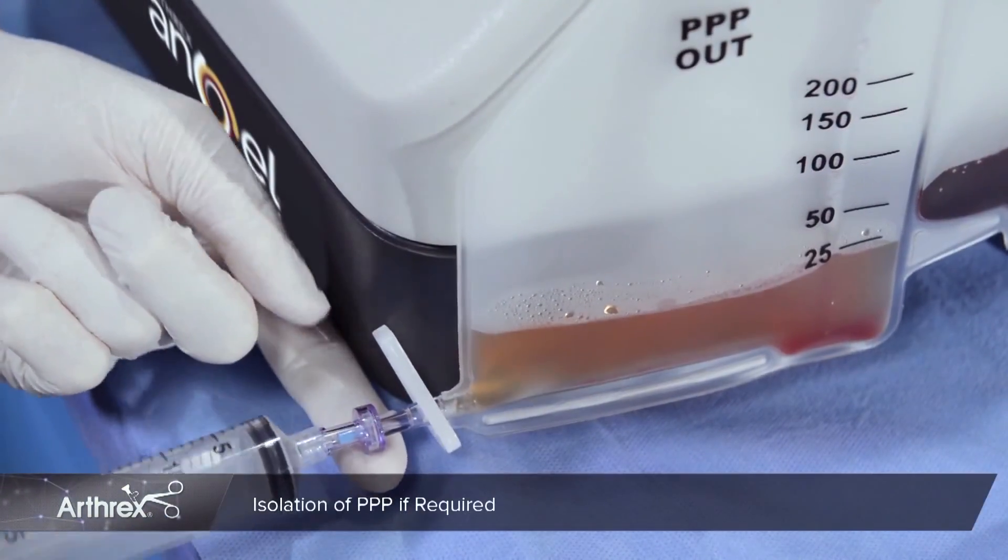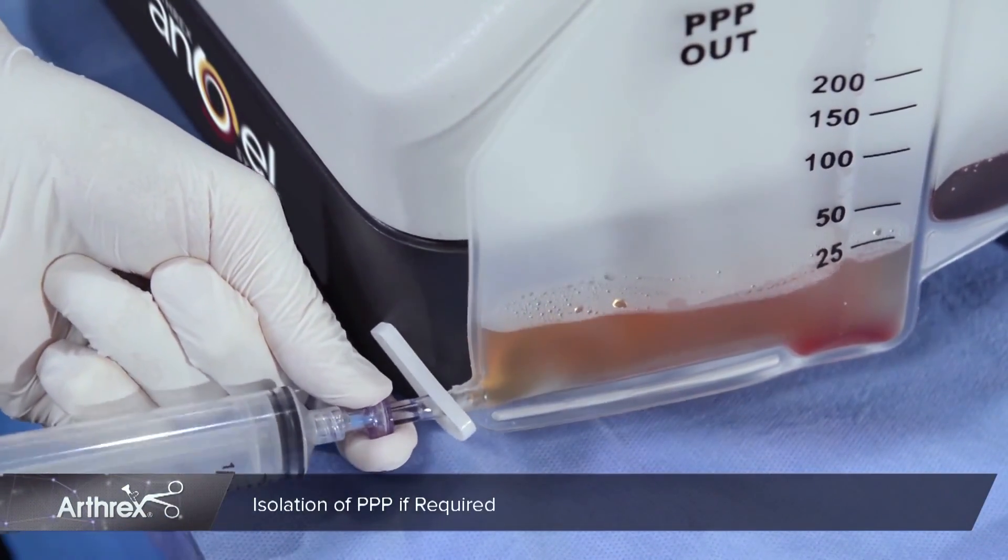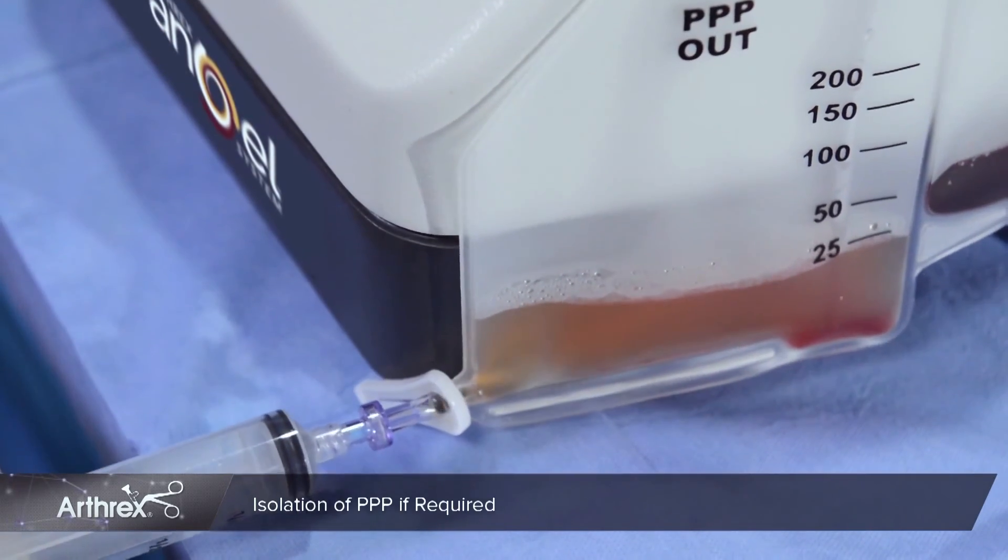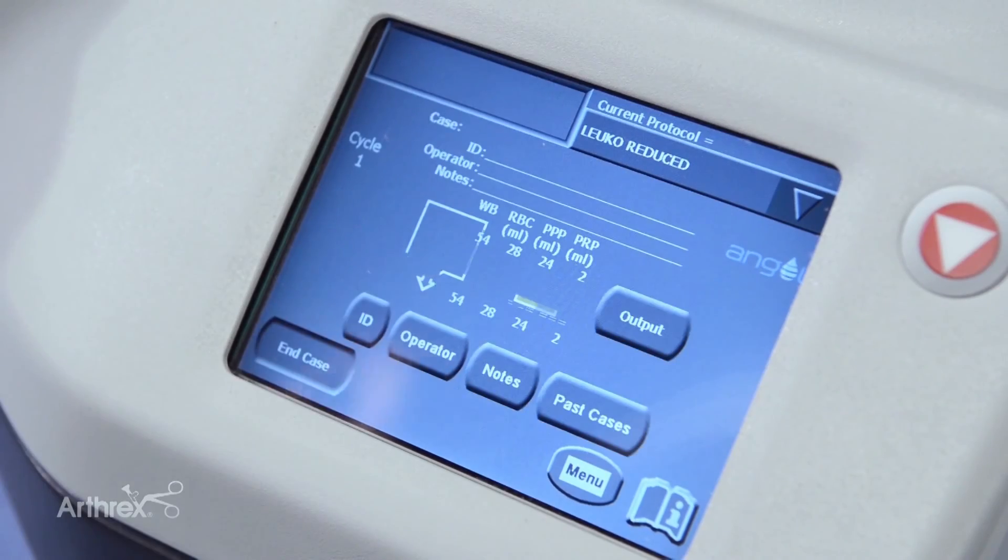If only platelet poor plasma is desired, it may be withdrawn from the port on the PPP compartment. To complete processing, press END CASE.